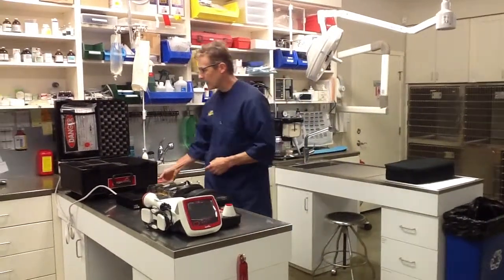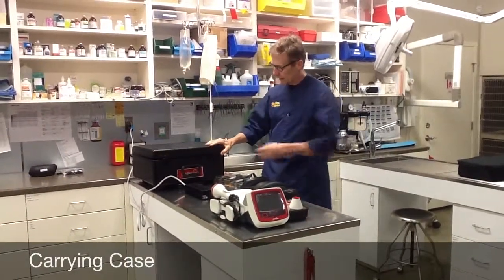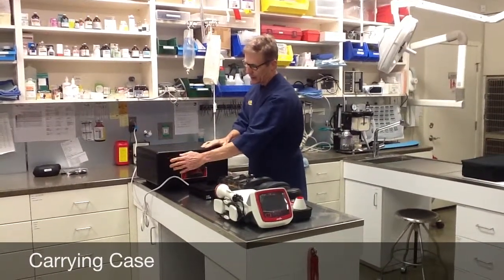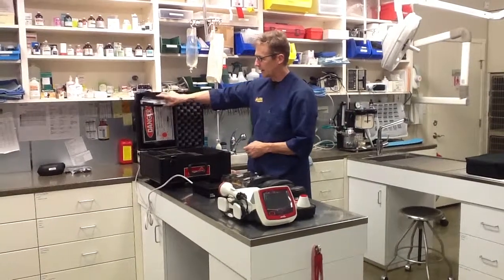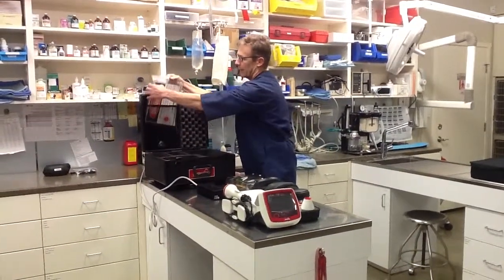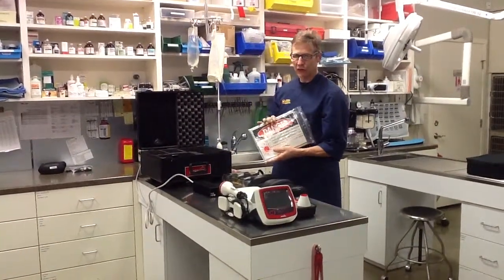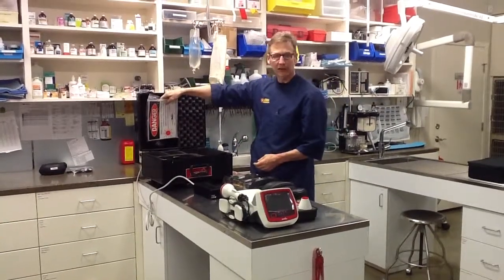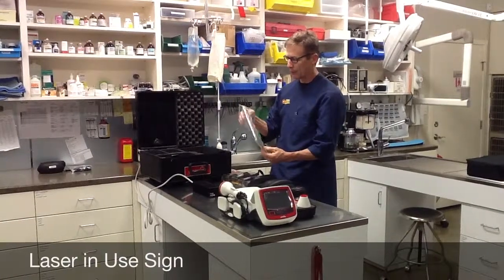This is the carrying case that the laser comes with. It's a really robust, easy to get around item. It's got wheels on it, an extendable handle, and a couple of locks. I typically do not lock my box, but if you want to, there are keys in the back of the carrying case. In the back folder I always have my laser-in-use sign, especially for mobile practices — that's a great place to keep it. When you have the laser out, you'll have the proper posting that you need.